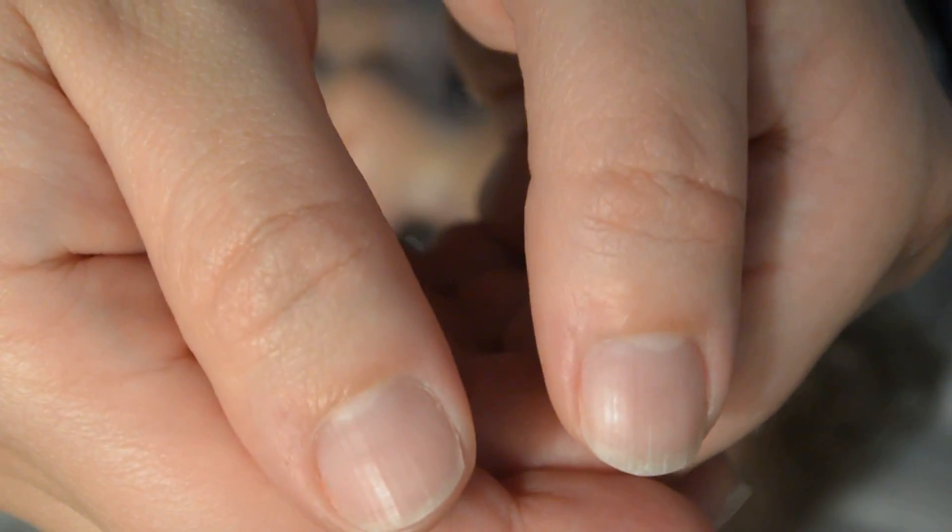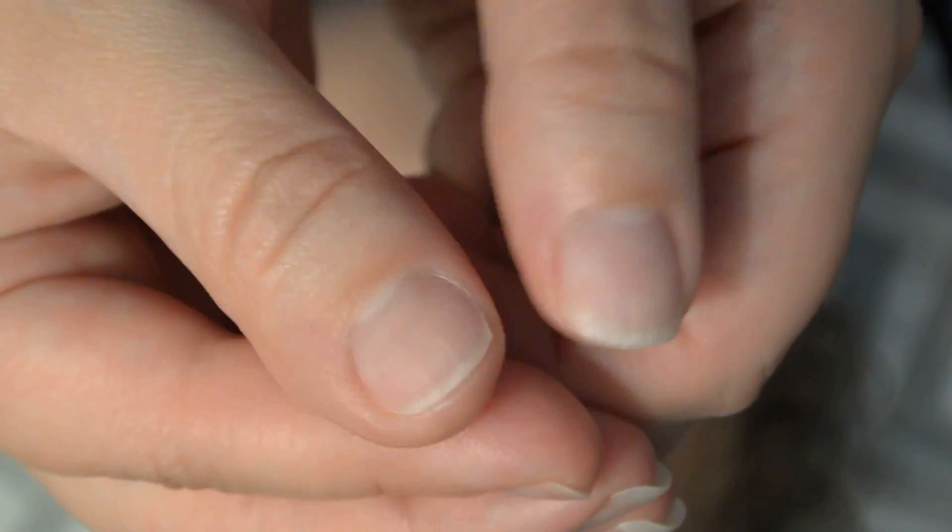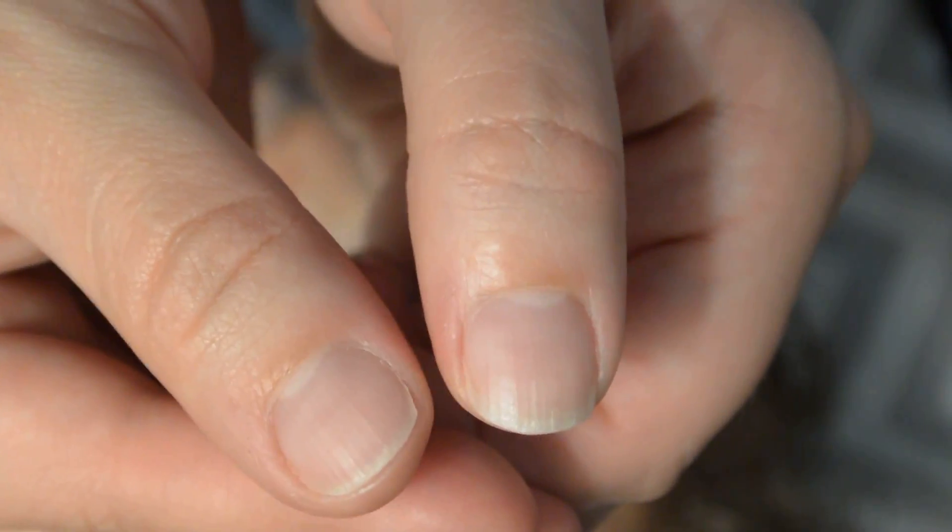So instead of trying to pop it out or press down on one lid and pop it up, I found that it is best to use both of my thumbs, using the edge of my thumb right here. I pull the lids open with my thumbs and then very gently push down and bring the thumbs together, and I can pinch it off in an upward motion — open and then bring it up.